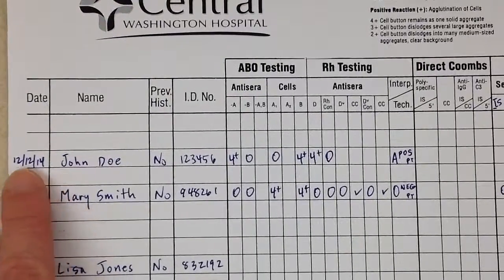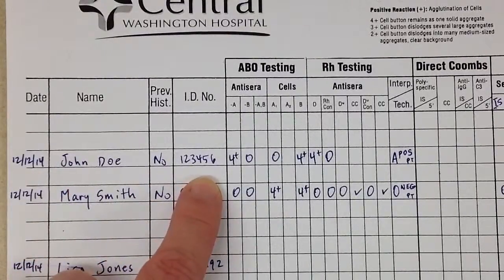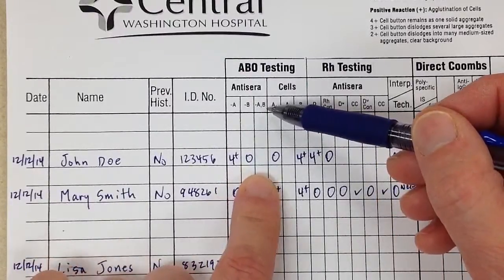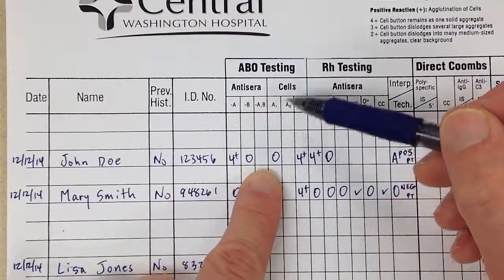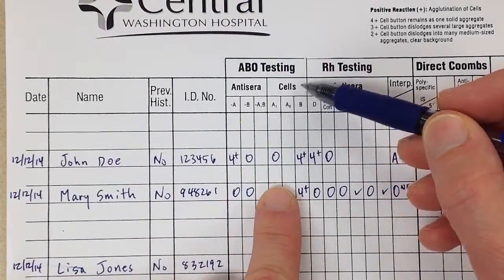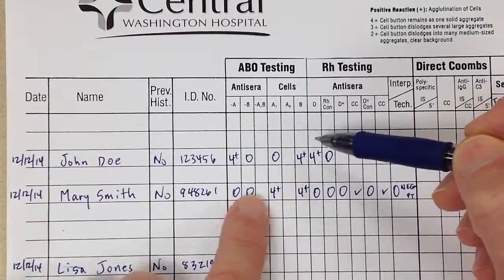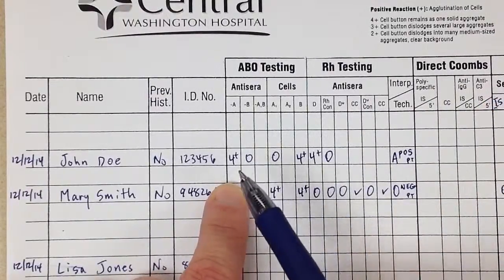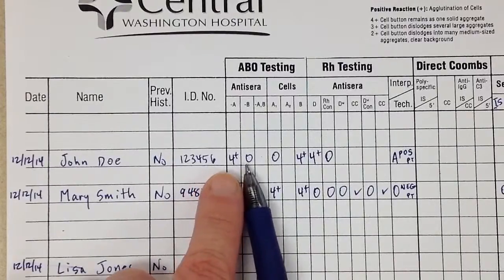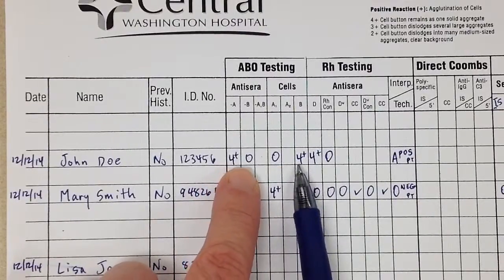The first patient is John Doe. We have today's date, no previous history, and ID number 123456. His forward type is 4+ for A and negative for B. For the reverse, he was negative for A1 cells and positive for B cells. So looking at the forward type, he typed as A, and the back type confirms this - he agglutinated with the B cells, confirming he is an A patient.